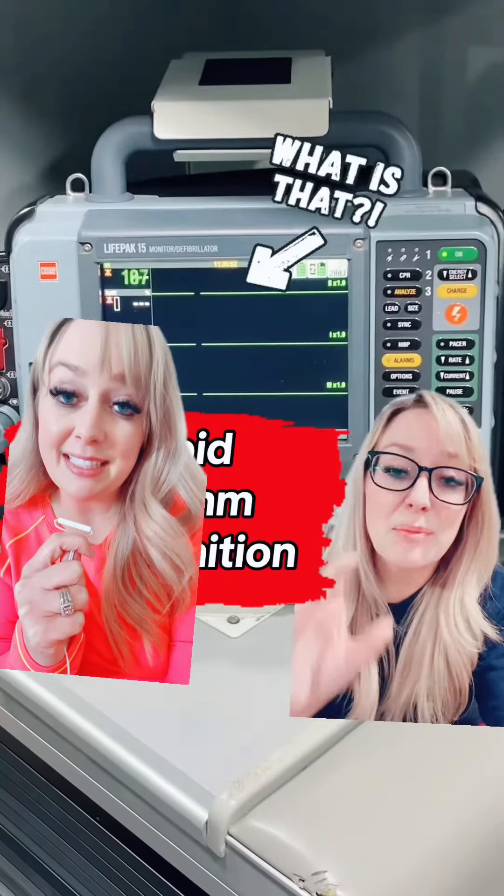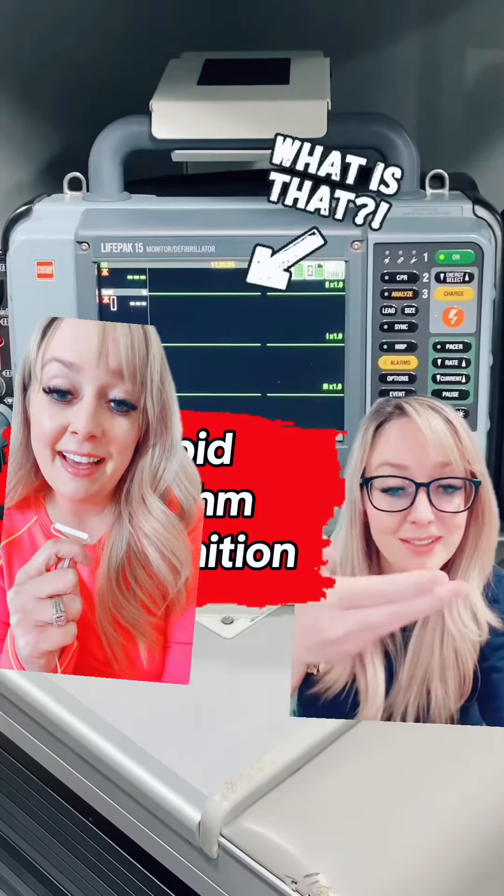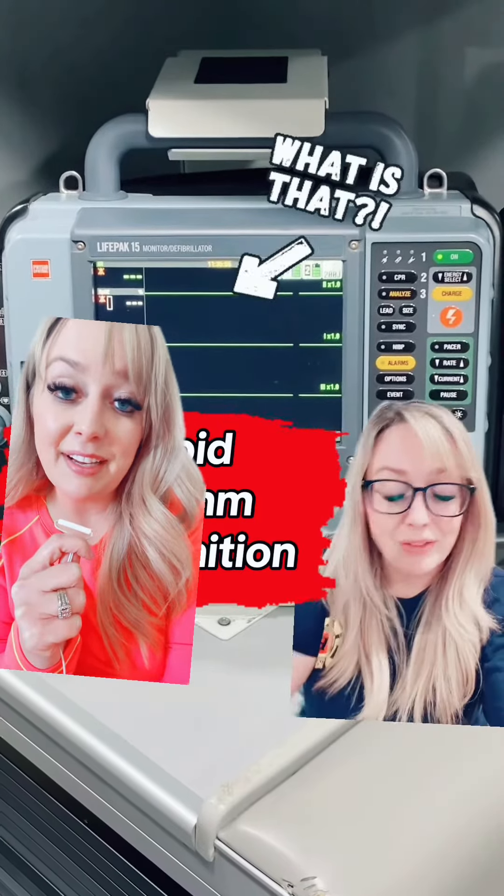What we have here is called asystole, also known as a flatline. This signifies the end of any electrical activity in the heart, so the heart's no longer beating, no longer contracting, and despite what Hollywood wants you to believe, we do not shock or defibrillate asystole.